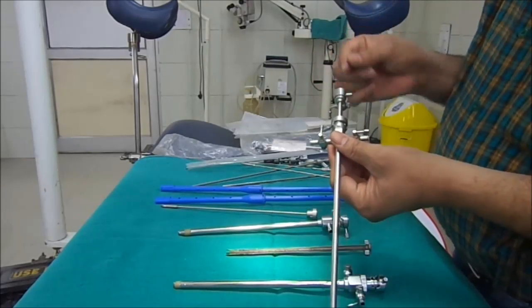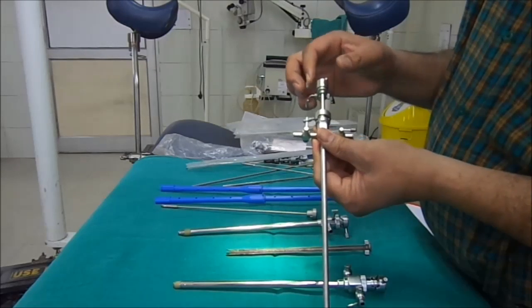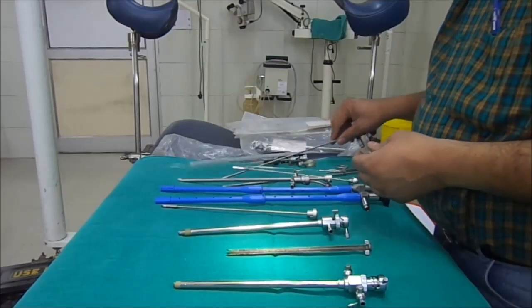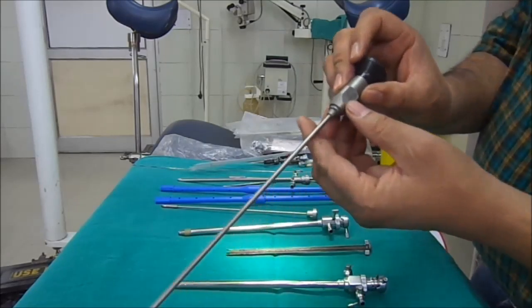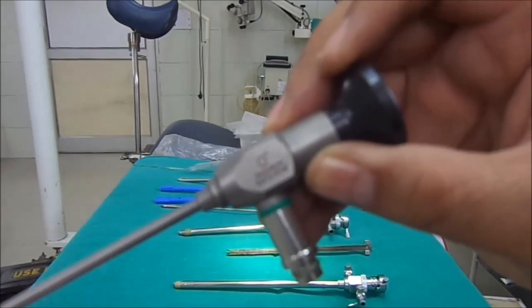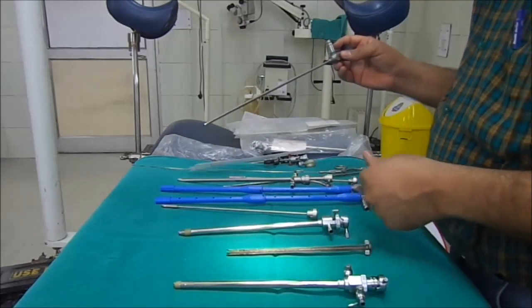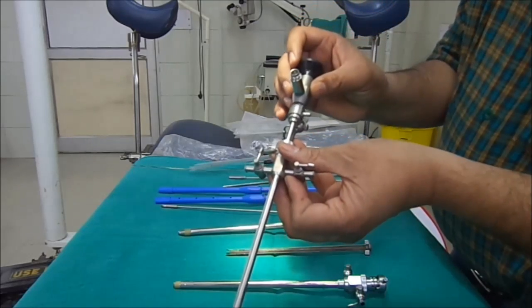At another end of the telescopic bridge there is a point for locking and unlocking, and through it the telescope is introduced. We usually have three types of telescope. I am demonstrating the zero degree telescope, which is best suited for urethroscopy as the vision is straight. We also have 30 degree and 70 degree telescopes, which I will demonstrate later.